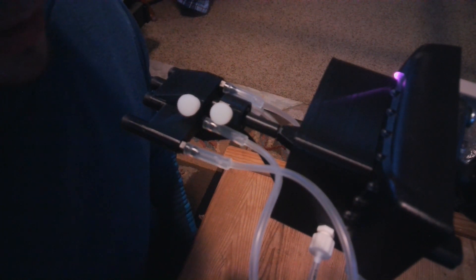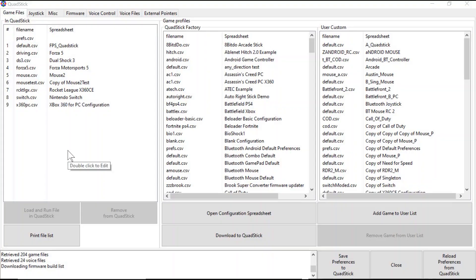Now that the Soft Sip and Puff is set to activate after 250 milliseconds or one-fourth of a second, it'll be much quicker to access in games. As a user gets more skilled, this will be a better option as controls can be accessed much more quickly in high-paced scenarios. Some individuals might have difficulty accessing the side tube on the Quadstick, and therefore might not be able to switch profiles or load new game files.